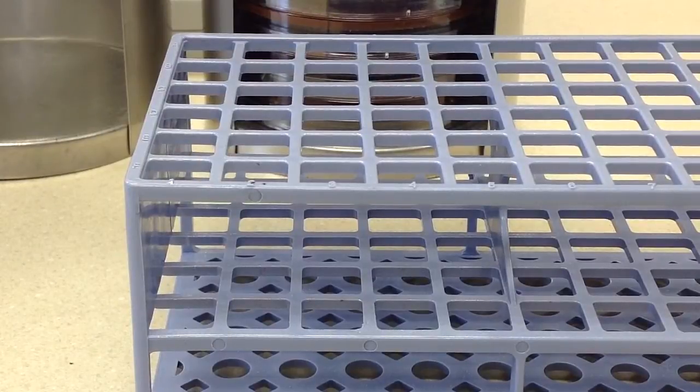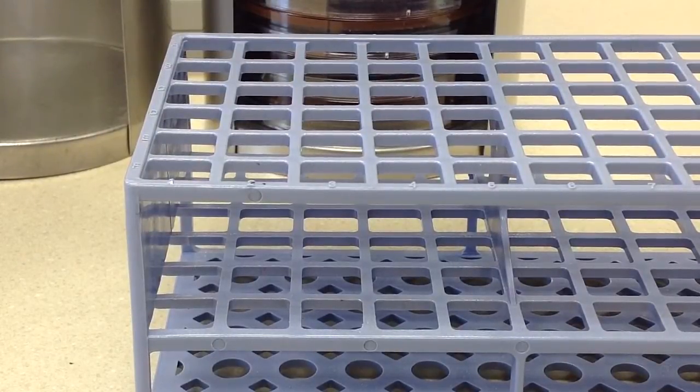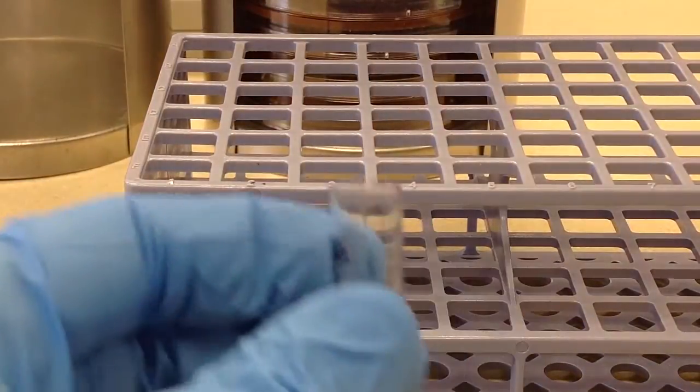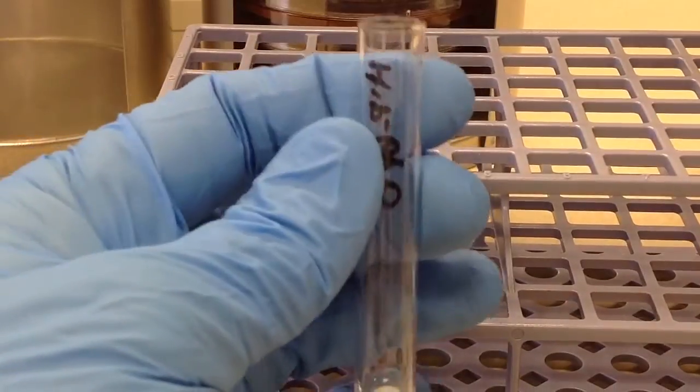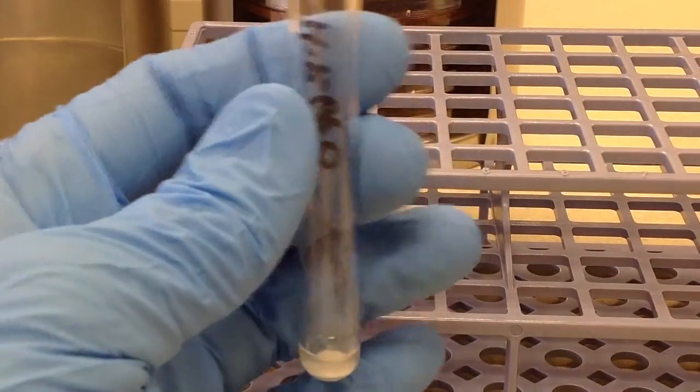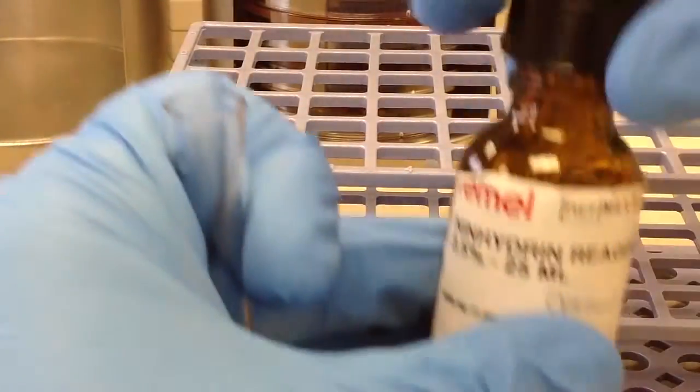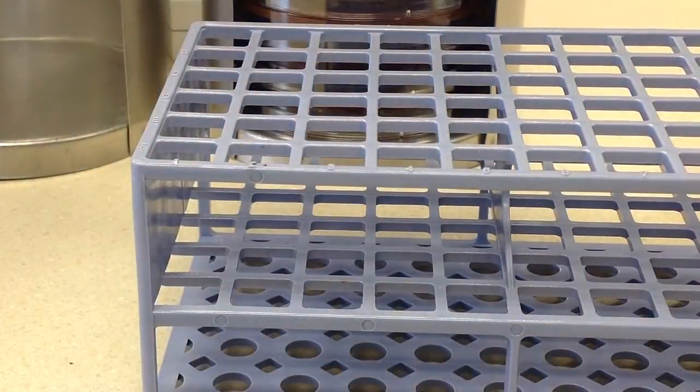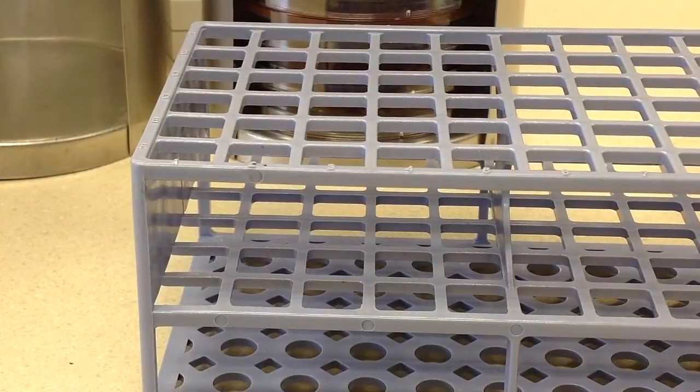As with all reagents, they should be up to room temperature and mixed. We'll give that a little mix, I'm going to parafilm it back up, and then it goes back in the 37 degree incubator for 30 minutes.